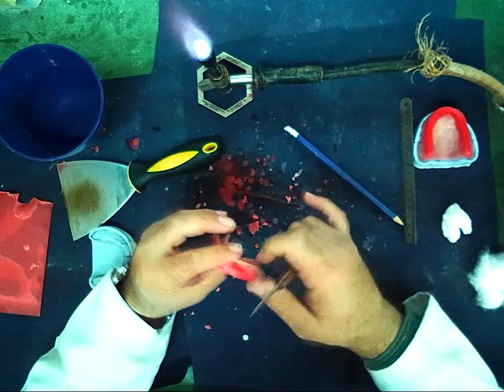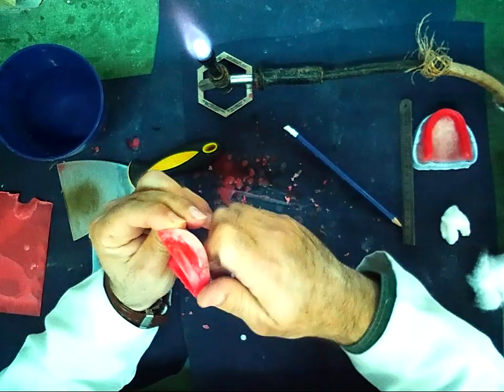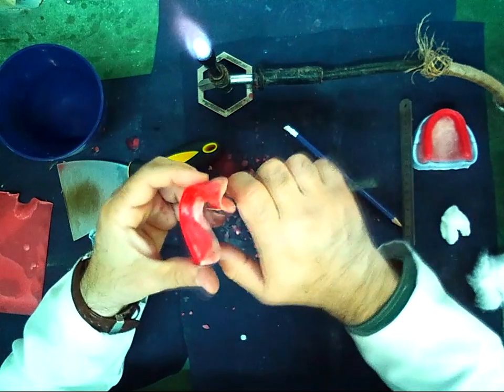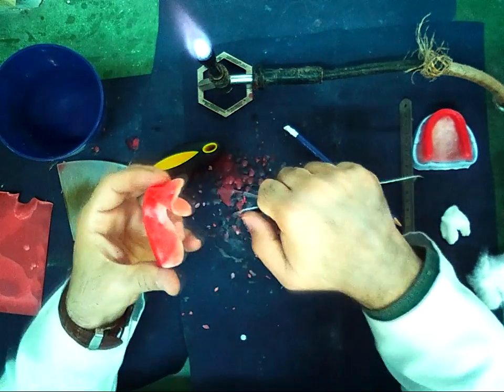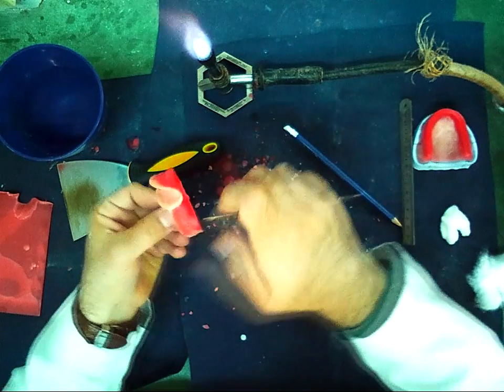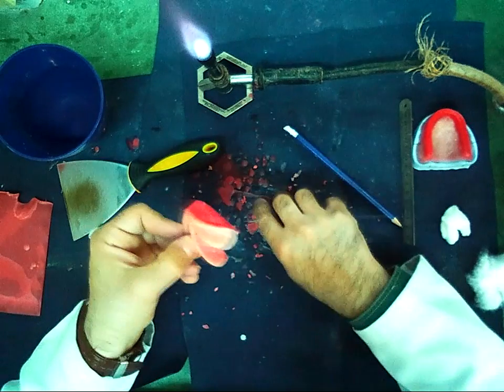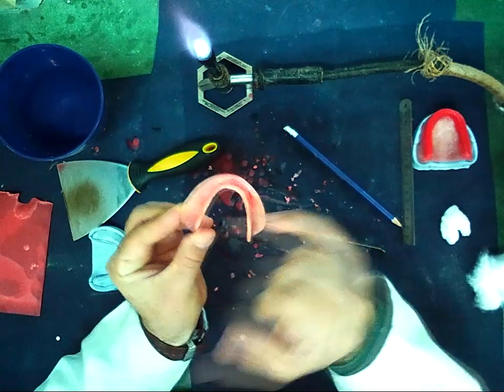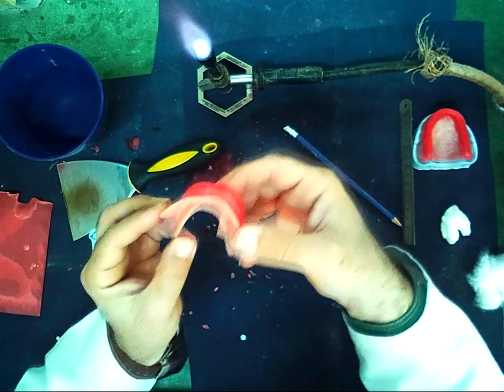And I should remove the wax on the border and the flange of the record base, from the lingual and labial and buccal. And it should be noticed that on the inner surface there is no wax, because if there is any wax, I should remove it.